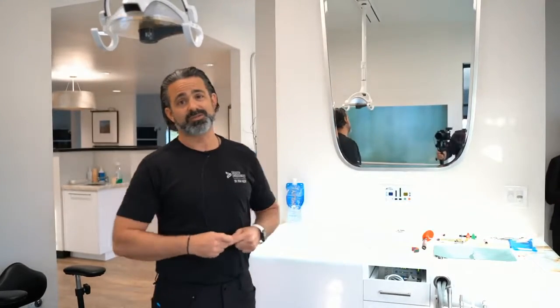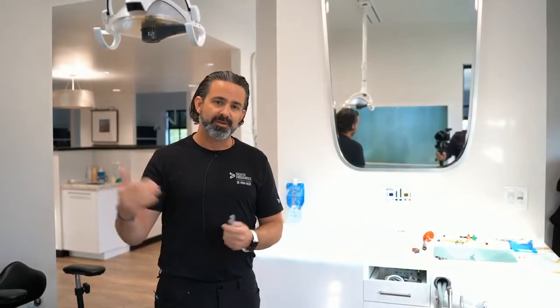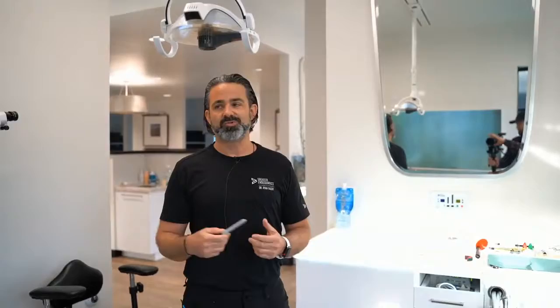So, as I was saying, I'm a practicing endodontist. Been practicing since 2005. My company's Greater Endodontics. This is my actual operatory. I'm going to walk you around the room and go over how I use a microscope, with the tips and tricks that I've learned, some positioning things, some parfocaling tricks, and really introduce you to how to be really fast and efficient with this microscope.